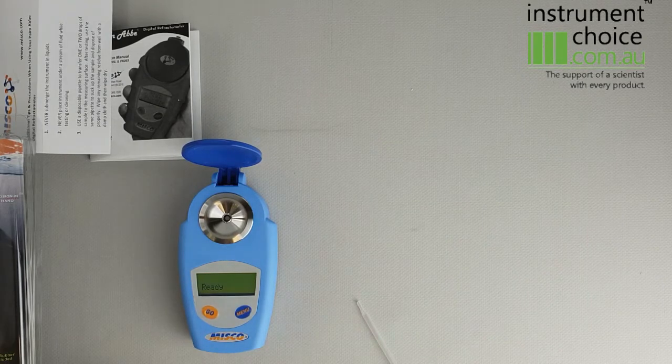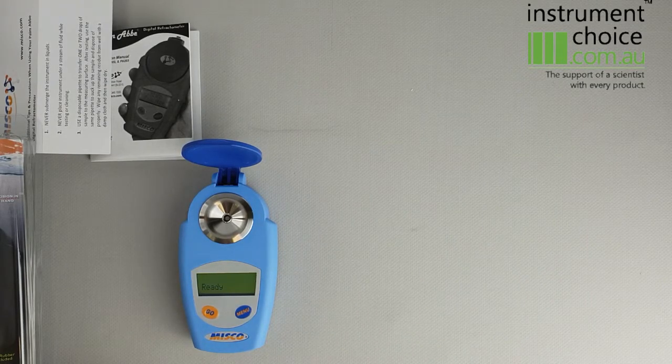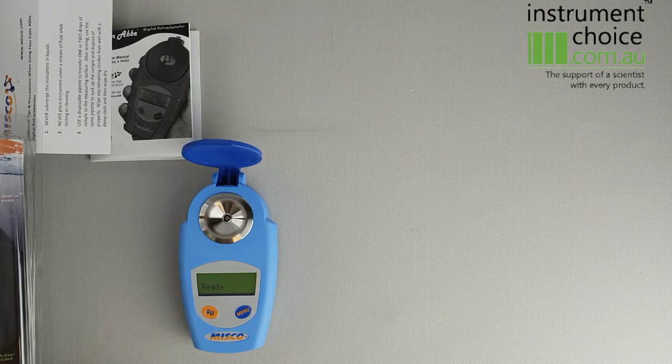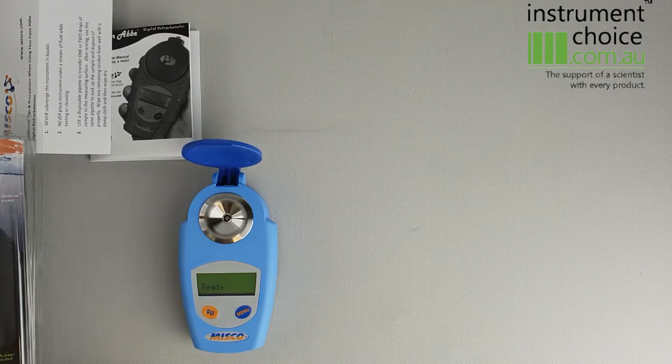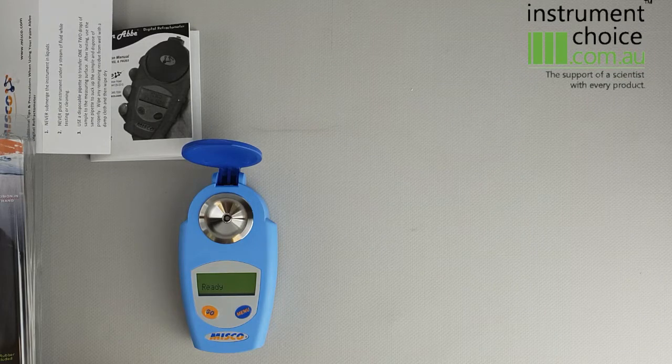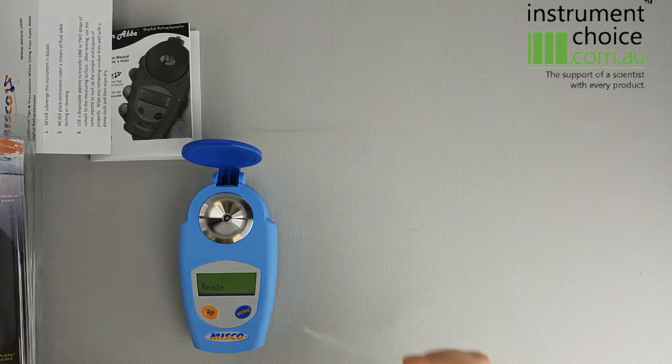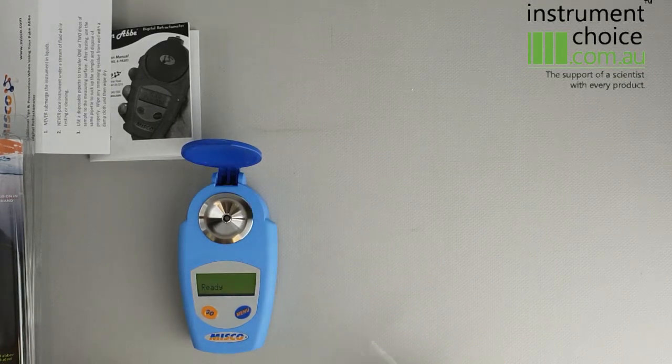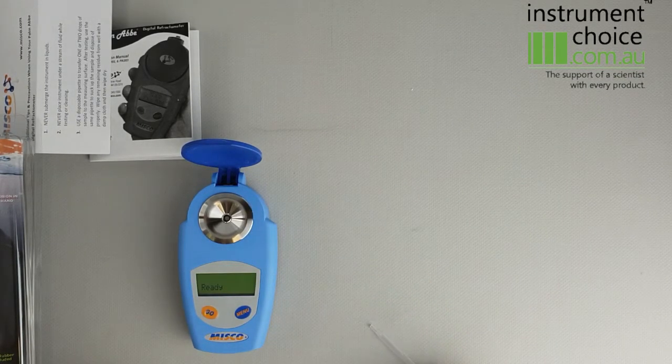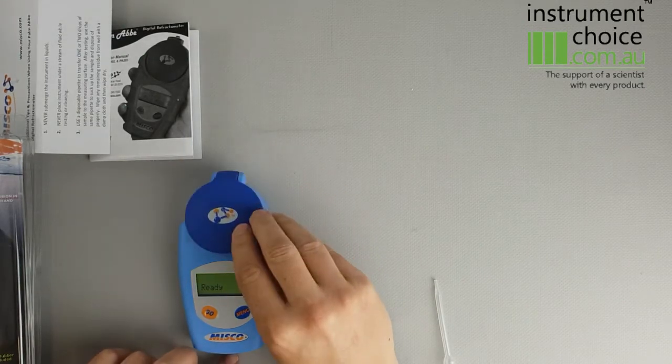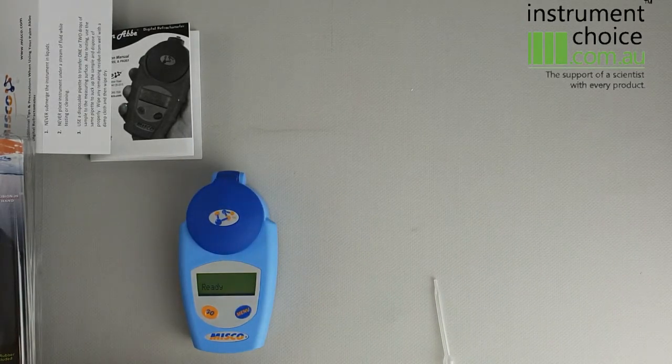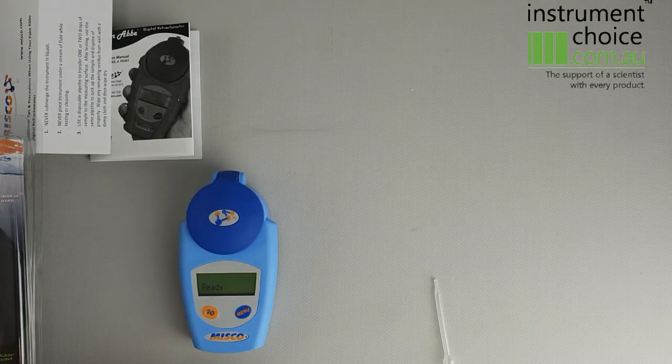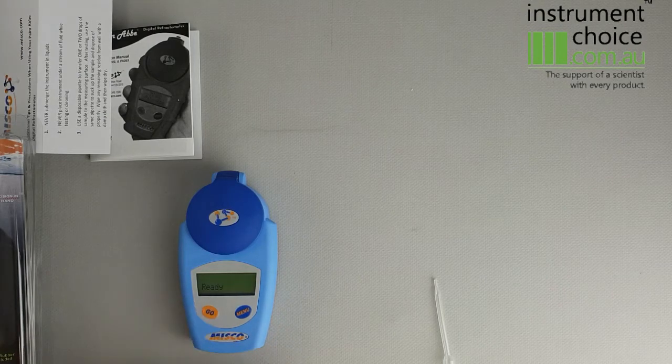To do a sample, you essentially get a sample of the urine. Obviously a sterile pipette for example is probably best and rinsing it between use. So you just take a small sample of urine, put it into the sample well just enough to cover that. Close the light shield to ensure that it's not obstructed or getting changed by incoming light conditions, and then just hit the GO button.